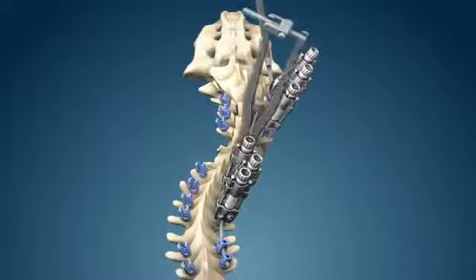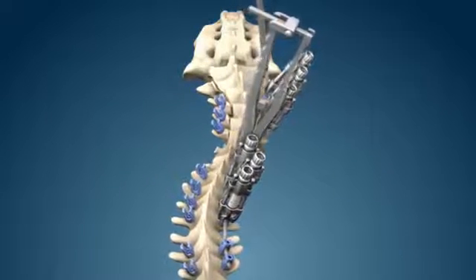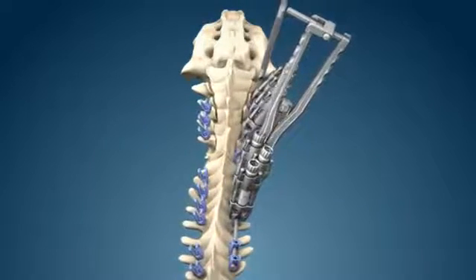Using hex end wrenches or rod grippers, the rod is rotated into the desired straight coronal plane orientation.